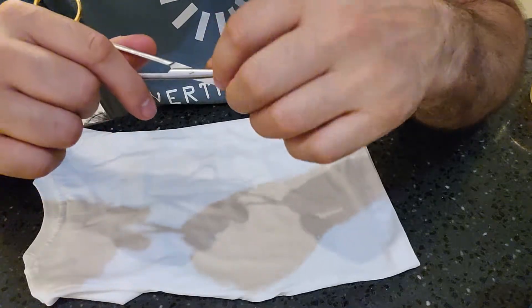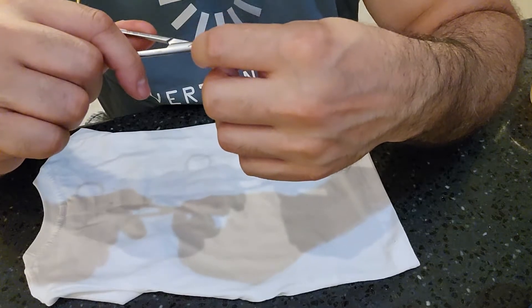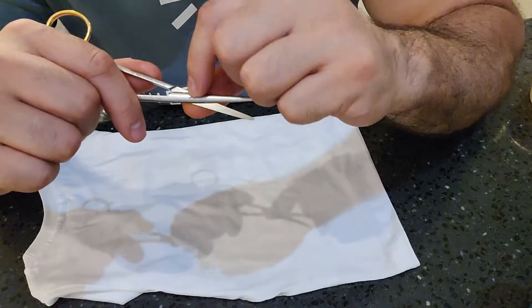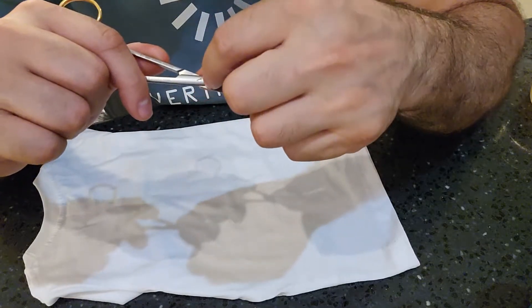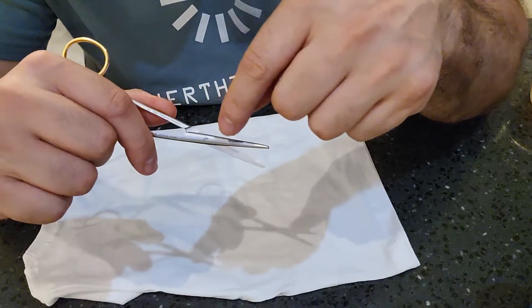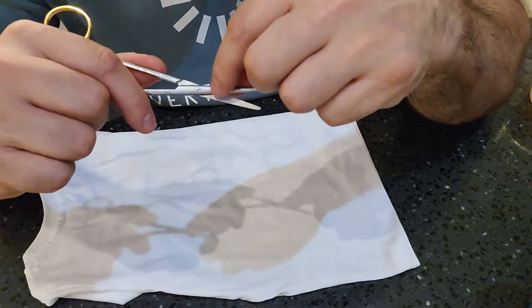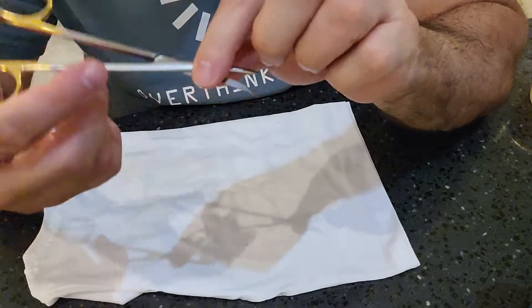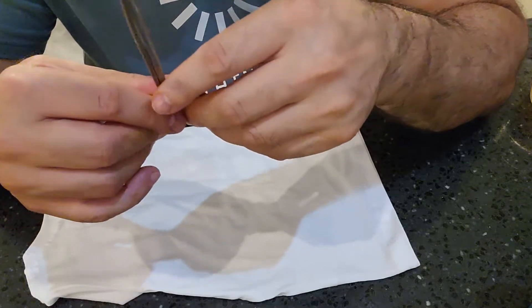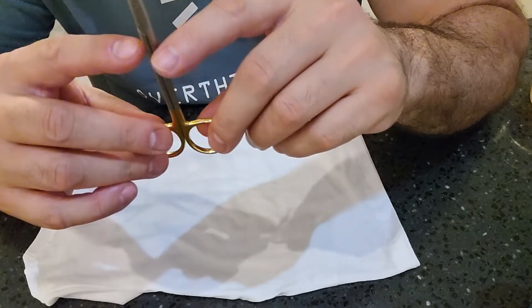You're inspecting that the screw doesn't back out, and inspecting the opposite side to make sure the screw is seated all the way with no gap — it should be nice and flush. Because there is a screw on here, you want to check the box lock for any cracking in the area around the screw. Any force given to this blade can cause cracking on the weaker ends, since that area has less metal mass where the screw hole is located.